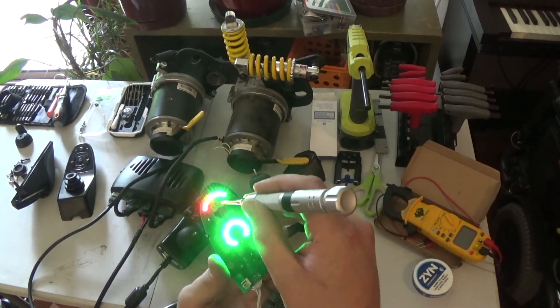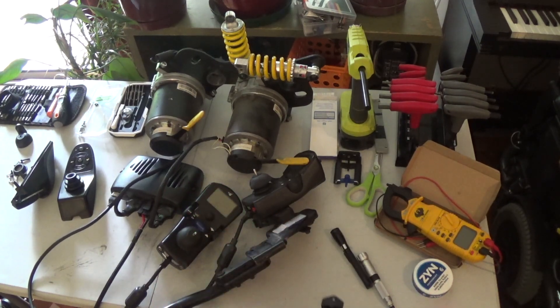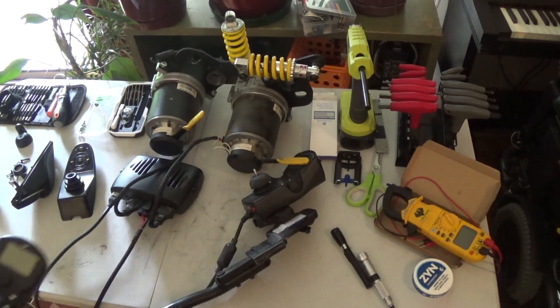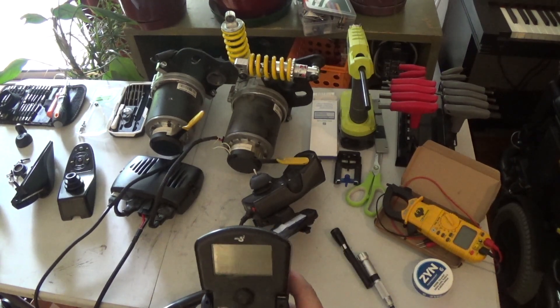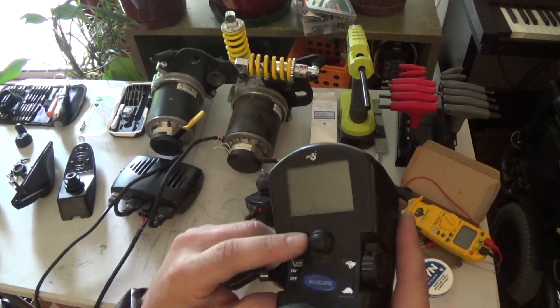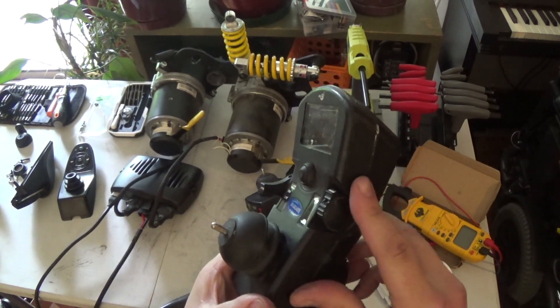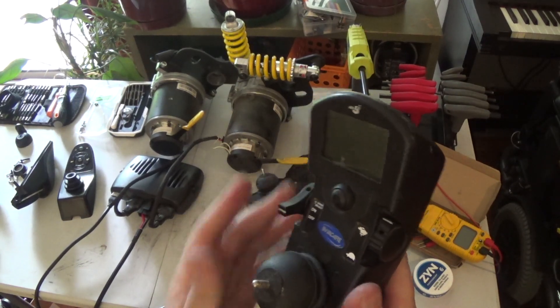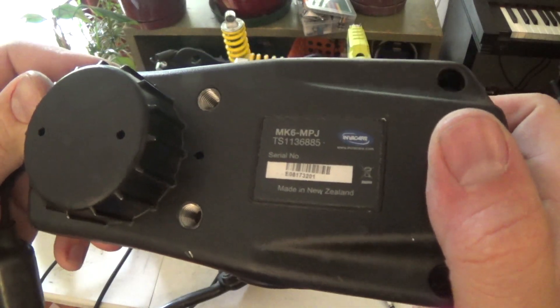Those work just fine. You can turn this controller on and off and everything's good there. The next joystick is an MK6 variant — this is the one with the grayscale screen. This model has the mode button here; not all of them have that in the grayscale version. It has a little speed pot for adjusting speed, and an off/on/mode switch. This is an MK6 MPJ.